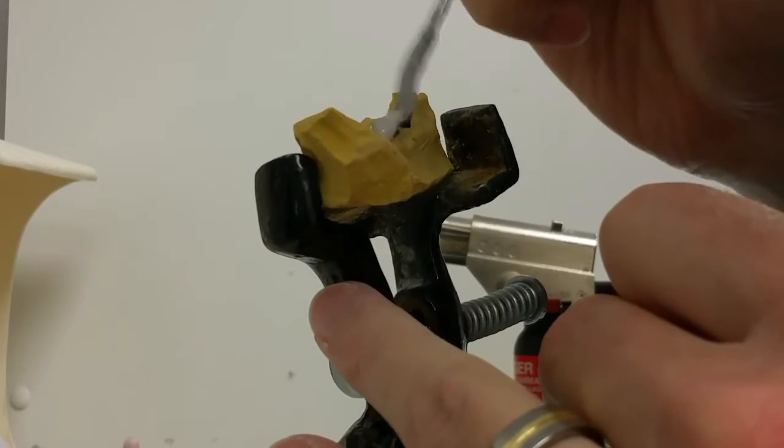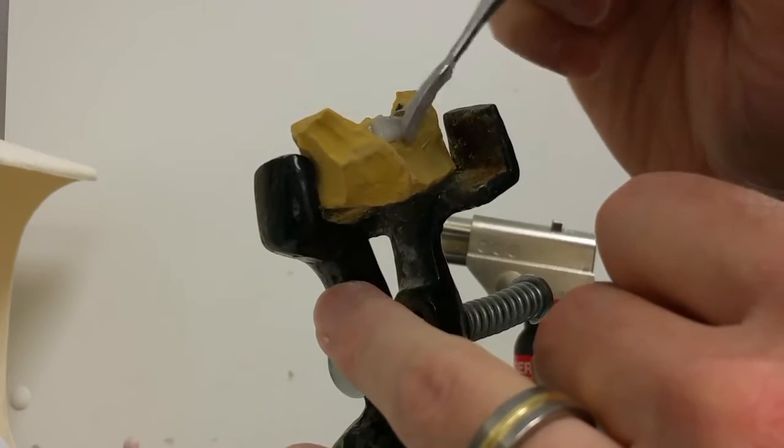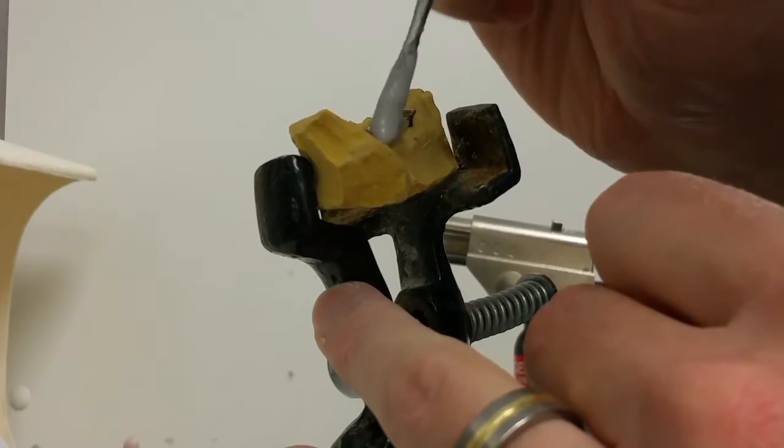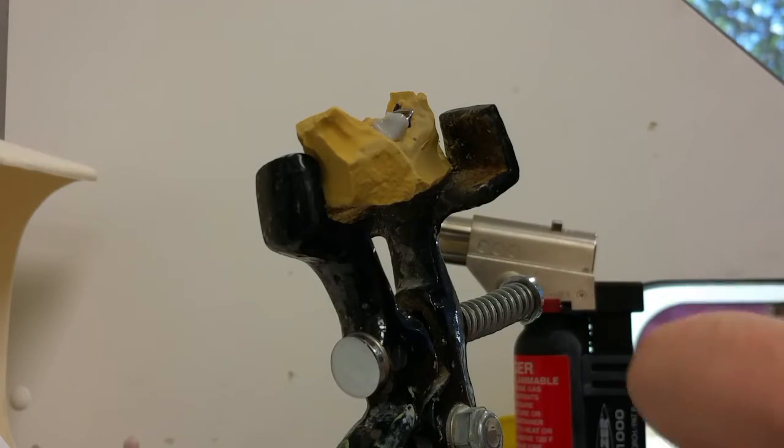I like the consistency of it. I'm just using a little instrument to put it on the wires. I put the flux wherever I want the solder to go.